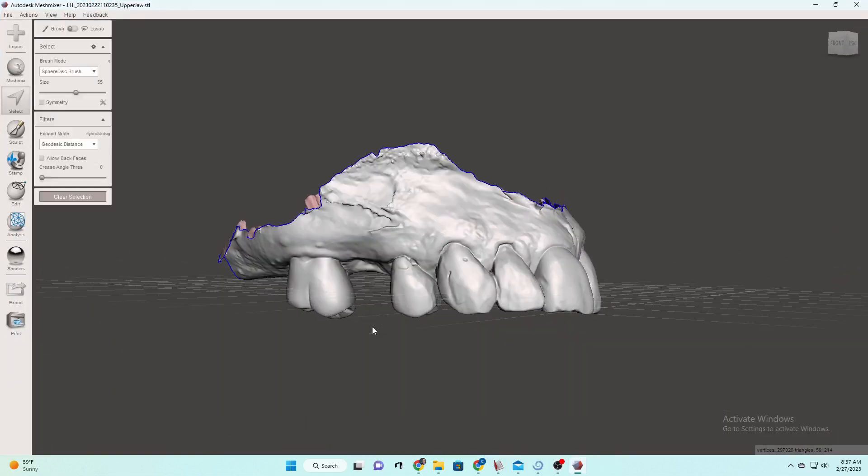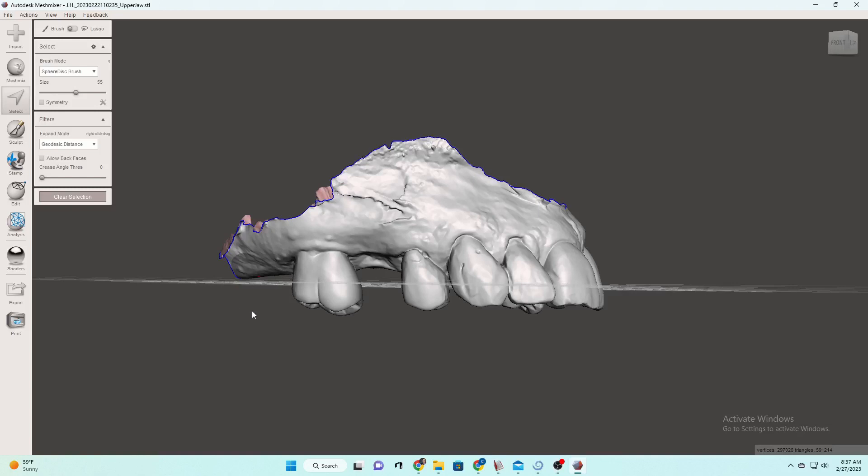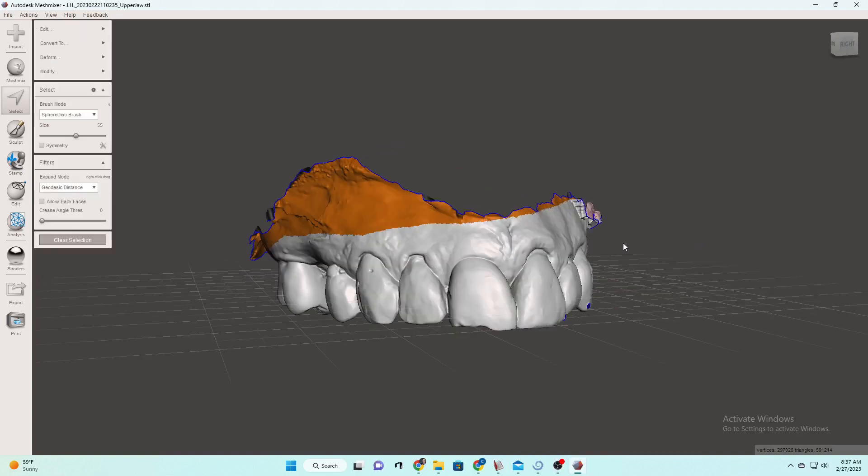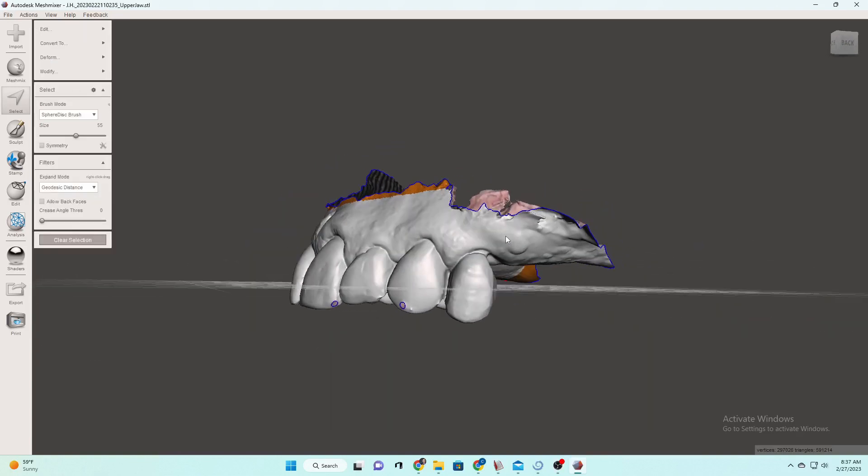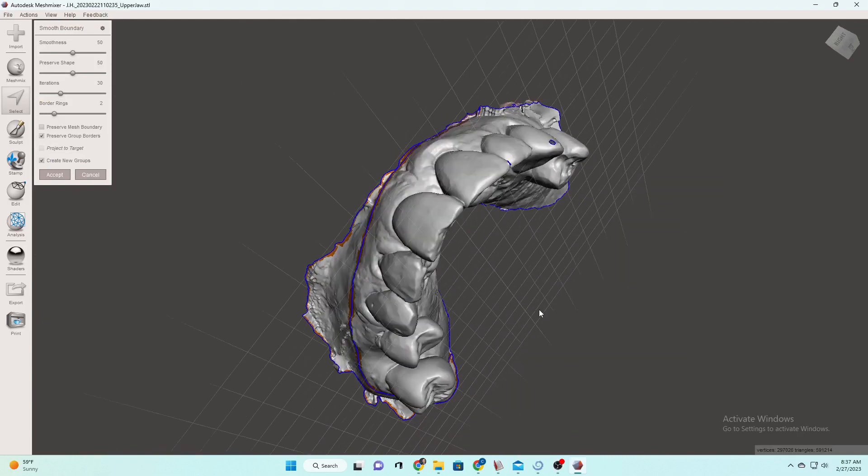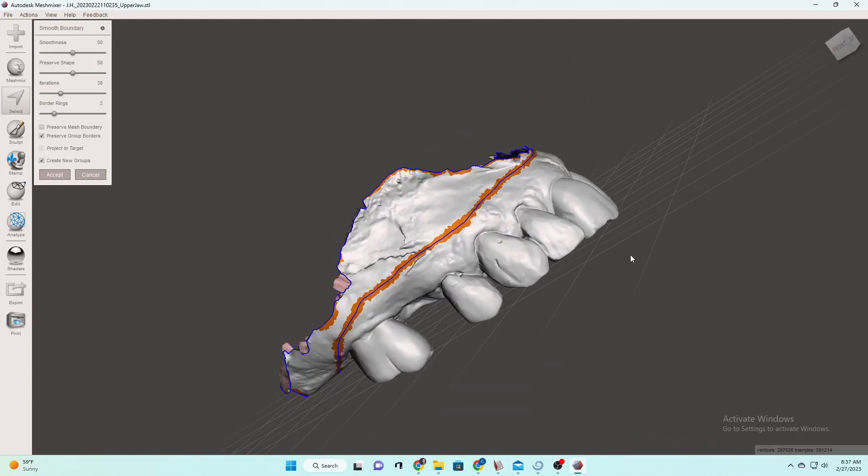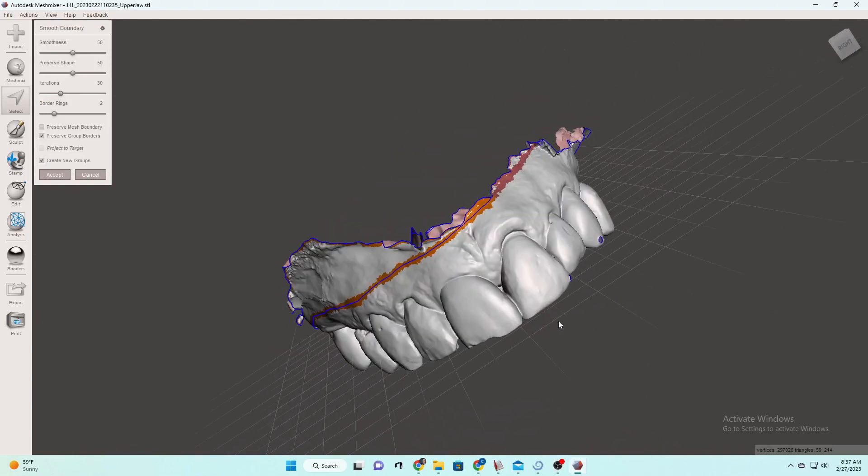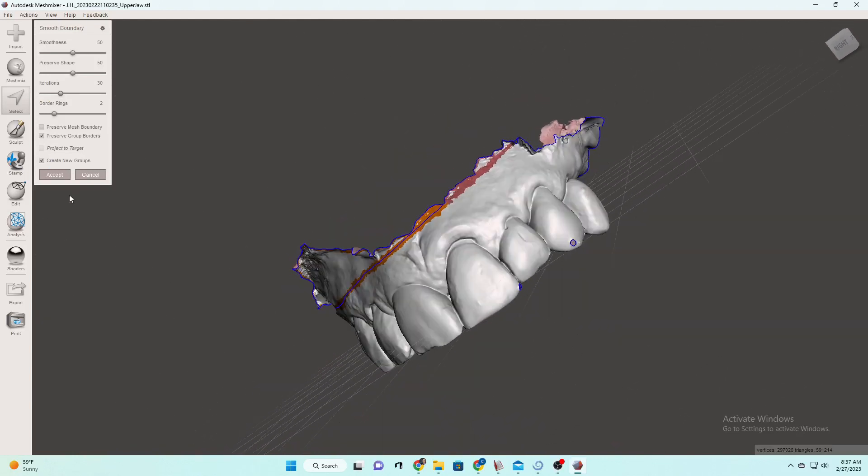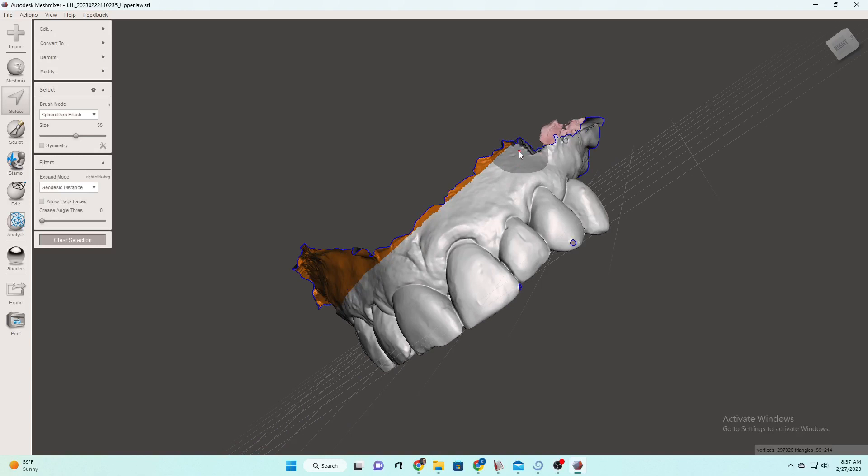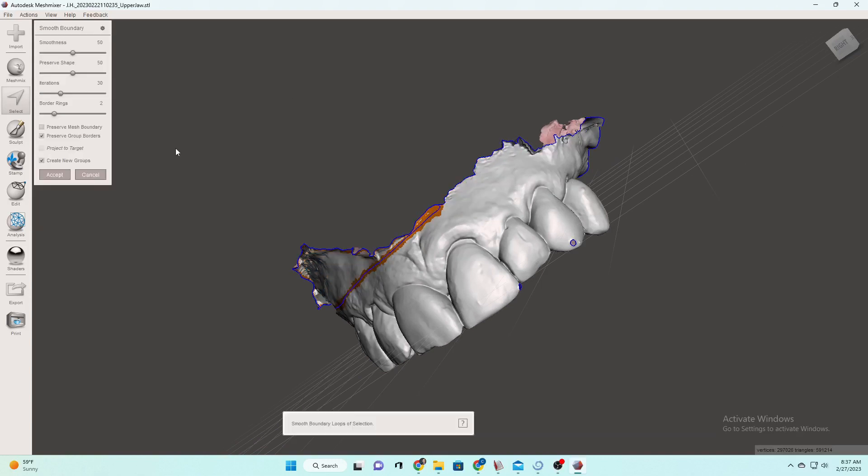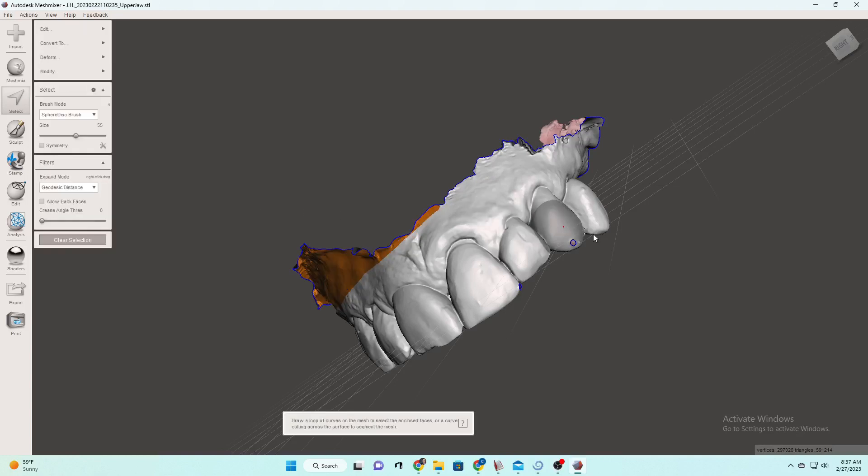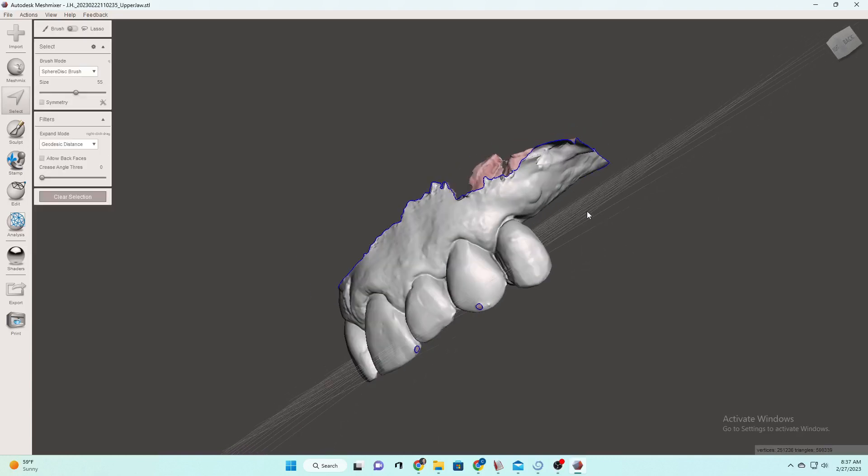So the first thing we're going to do is just clean up these models. I don't like to actually use the highlight. I like to click and drag and remember it goes all the way through. So because I dragged that you see it went even over to the other side. So B for border and it doesn't like that border right there. So we're just going to take that off, hit B for border because we want a nice even border.